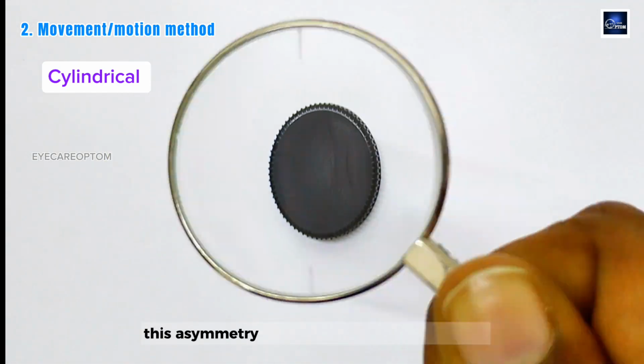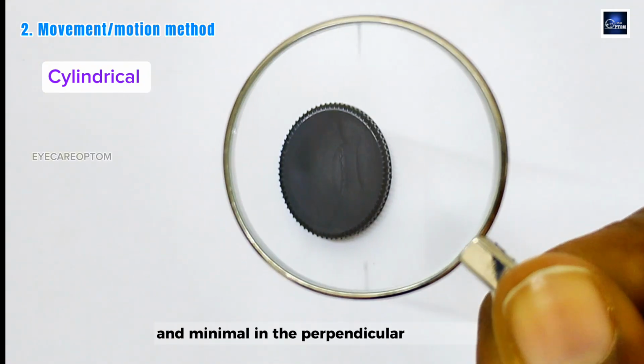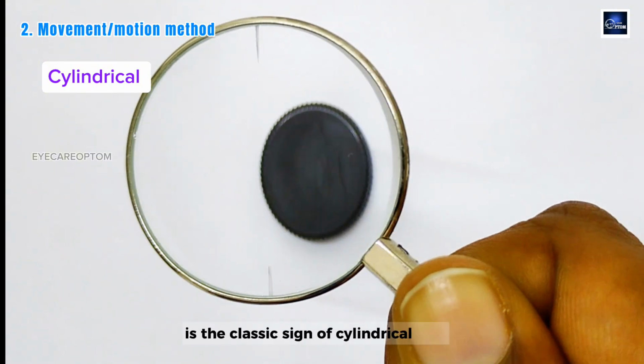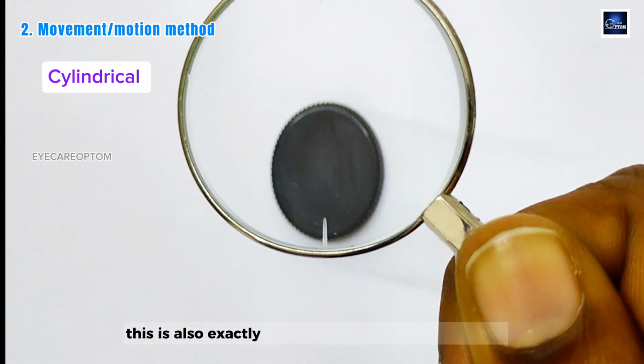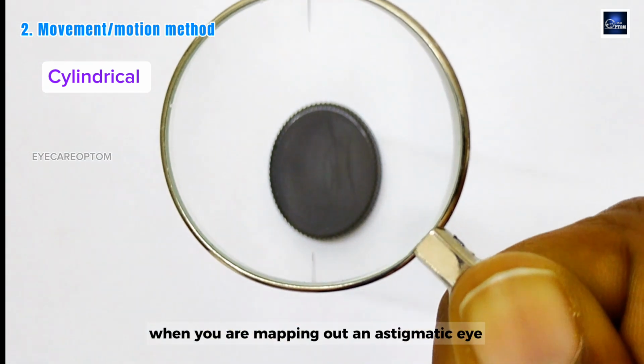This asymmetry, strong motion in one direction and minimal in the perpendicular direction, is the classic sign of a cylindrical lens. This is also exactly the principle behind retinoscopy when you are mapping out an astigmatic eye.